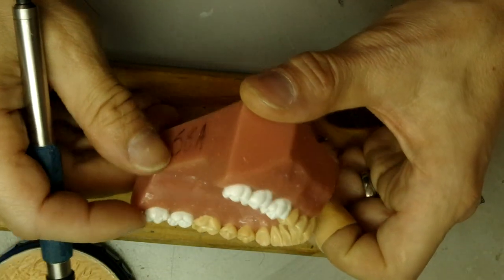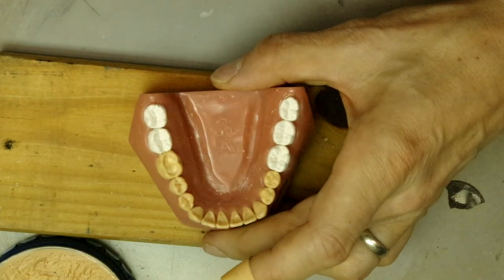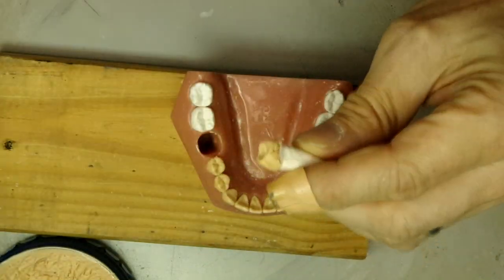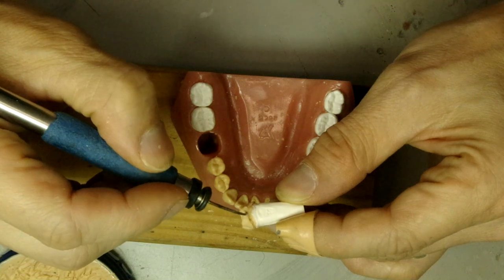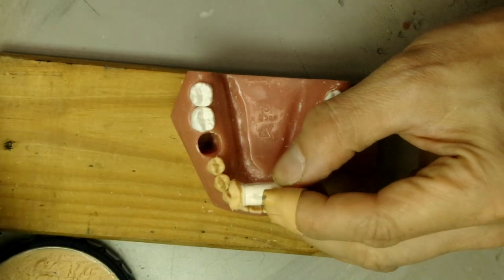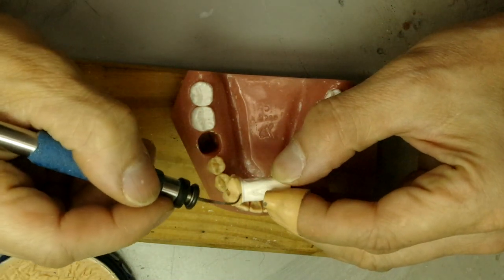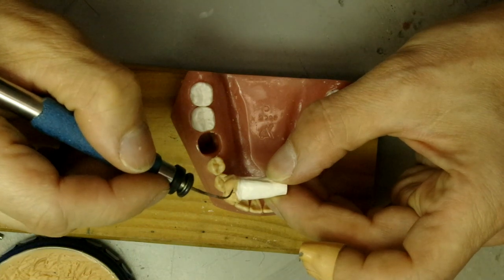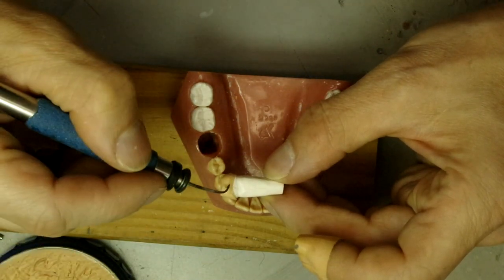We have the lingual side of the tooth, the buccal side of the tooth, and we have the fish mouth. The next thing we do is pop it out and fix up the margins and the interproximals wherever we have missing wax. Remember, not to overbuild it because then the tooth will pop out of the model. Make sure the wax only reaches the margin — not past the margin, but also not short of the margin.